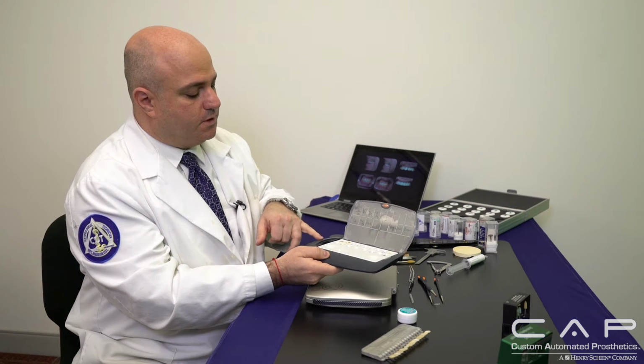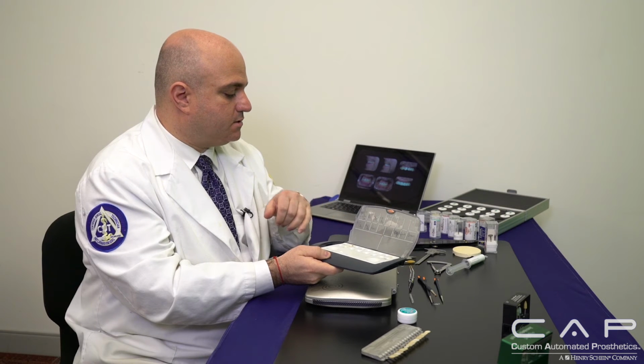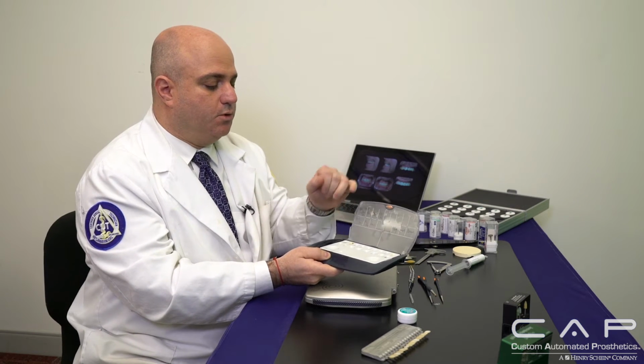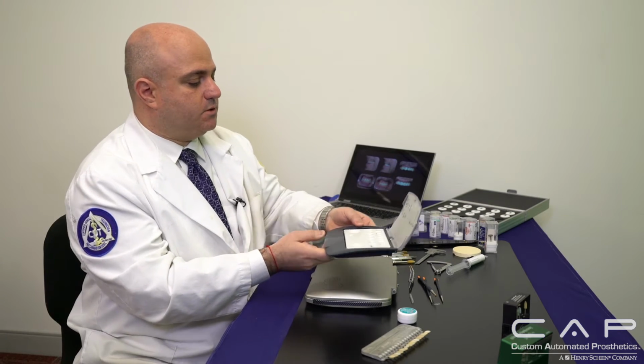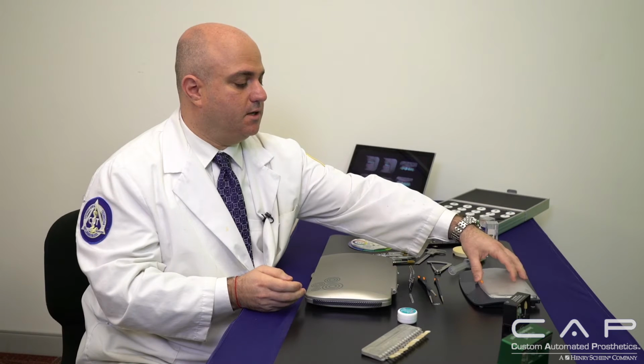So if you're doing this and perhaps you come back in the afternoon and you need to do, as in this case, another A2, A3, I can simply use a little bit of the diluter and get right back into staining, as well as the blue, the white, and the contrasting. So it's a nice tray that you can close, and you can use this as your staining and glazing, and then have it closed as you need be.